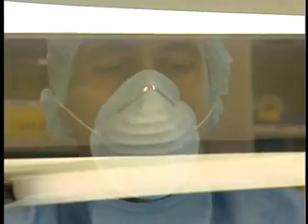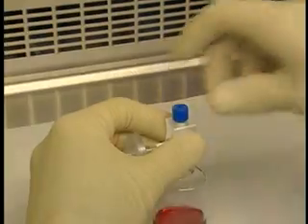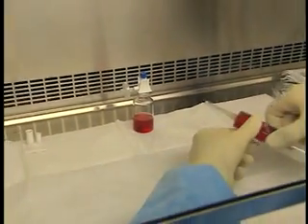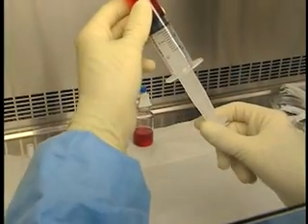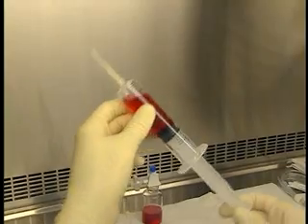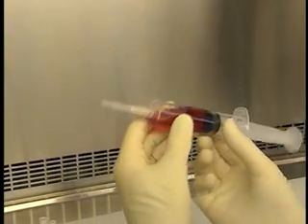Recap the dispensing pin without contaminating it. The vial can then be kept or discarded with the pin still attached. Before removing air bubbles, draw about 2 cm of air into the syringe so that the anti-neoplastic fluid does not leak into the needle guard.